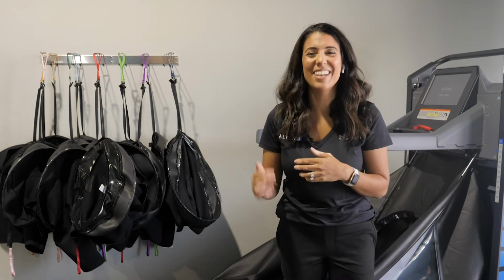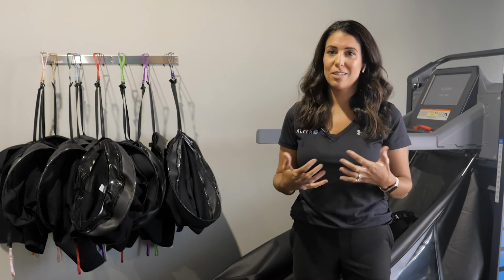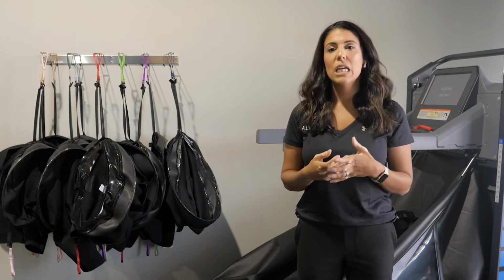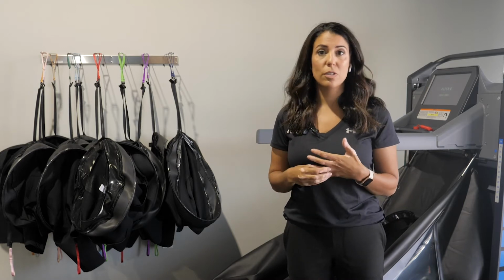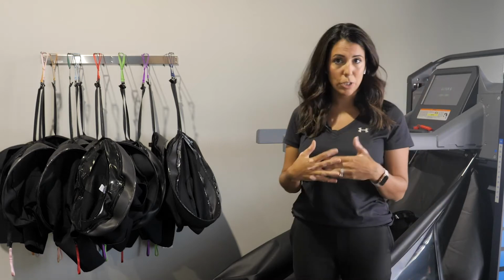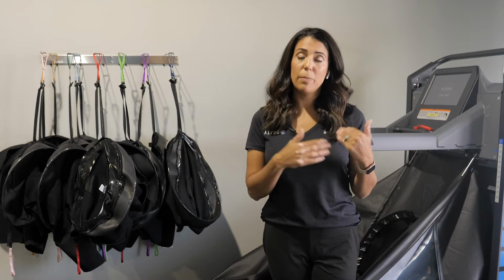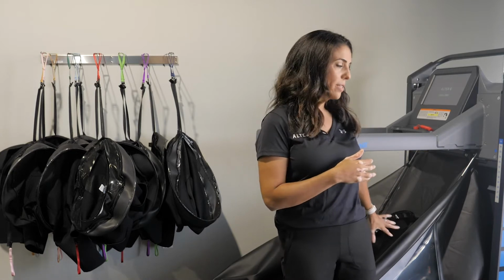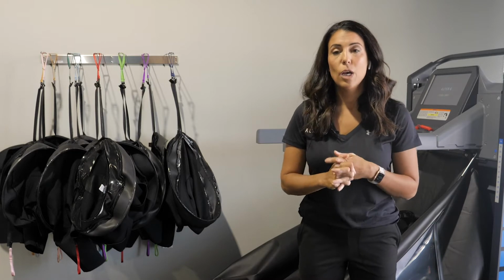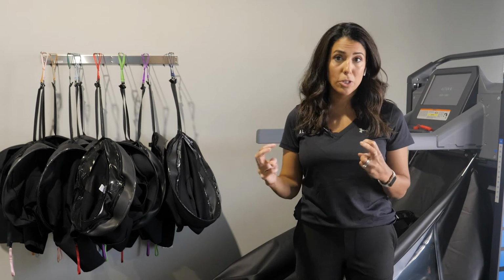Another way to think about it is the time to exertion. So if we remove some body weight, if we have that body weight support, it allows us to not achieve levels of exertion as quickly. We know that the treadmill is safe for cardiovascular conditions. We know that there's no negative effects of the body weight support, of the positive pressure that the treadmill provides on the cardiovascular system. So what this allows you to do is simply delay the time to exhaustion or exertion.